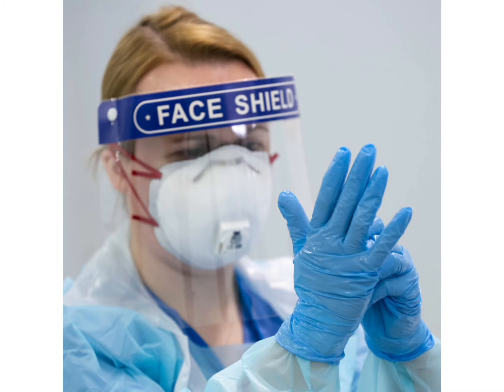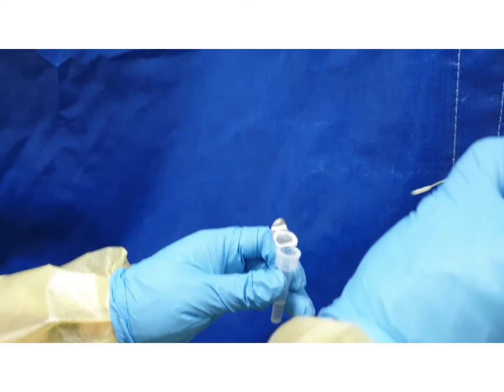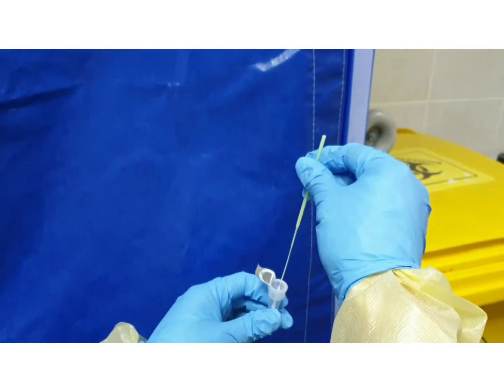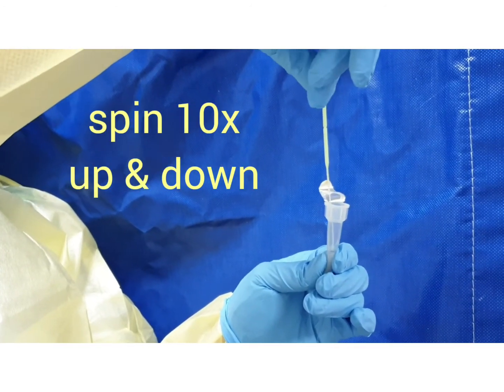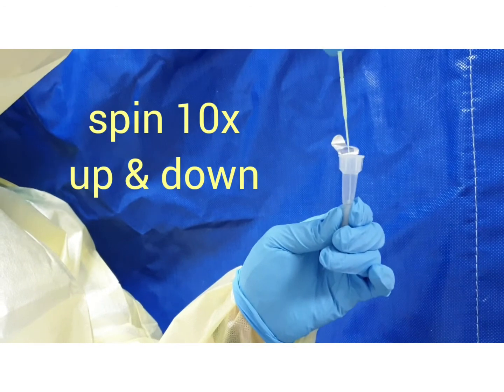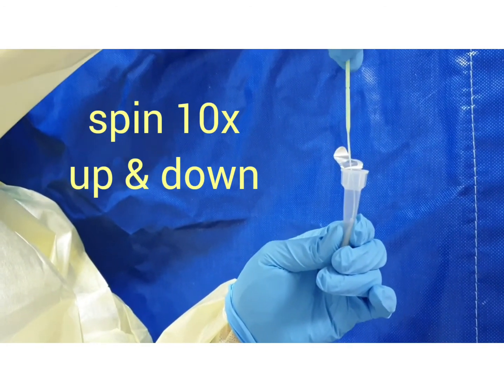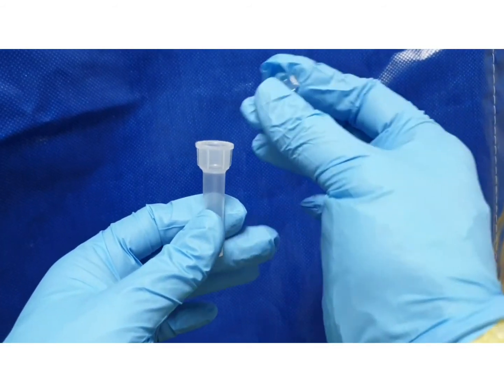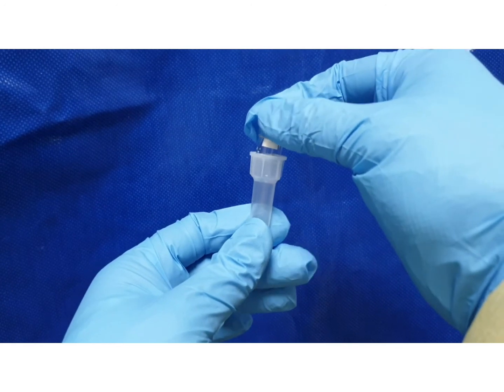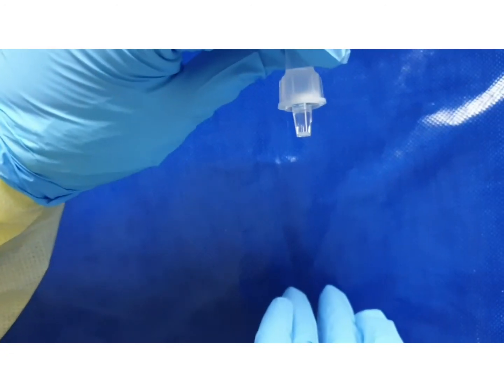In collecting and processing patient specimens, please make sure that you are wearing full PPE. Insert the collected swab specimen into the extraction buffer tube. Spin the swab 10 times while moving it up and down. Close the extraction tube with the filter cap. Please make sure to create a tight seal.